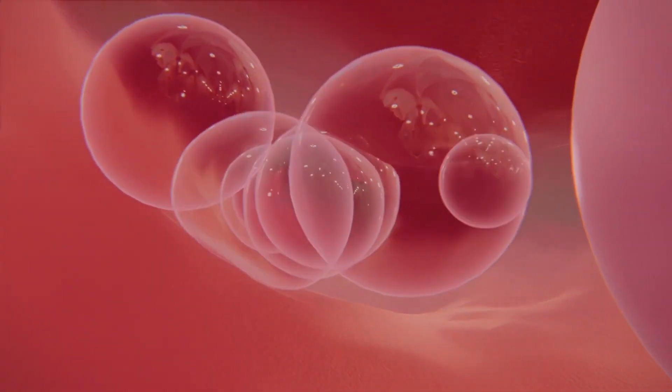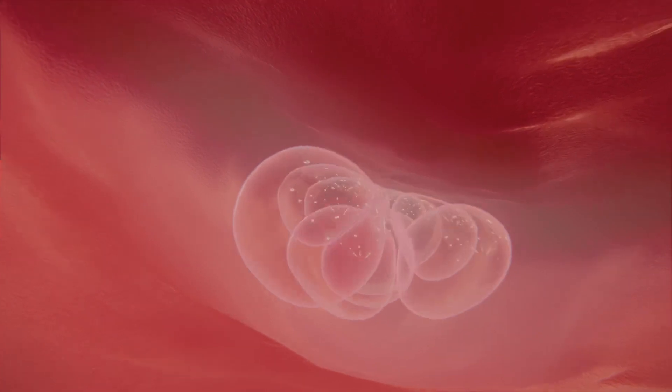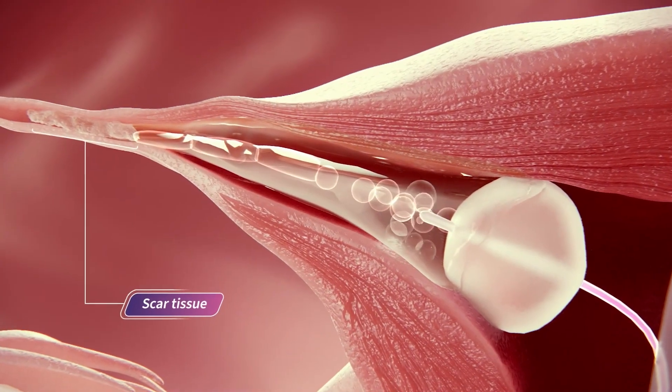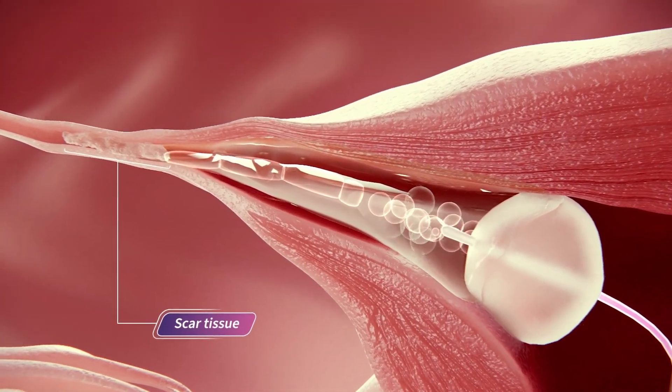But is unable to travel through the tube when occluded. This dynamic ultrasound test allows for a simple, comprehensive tubal evaluation.